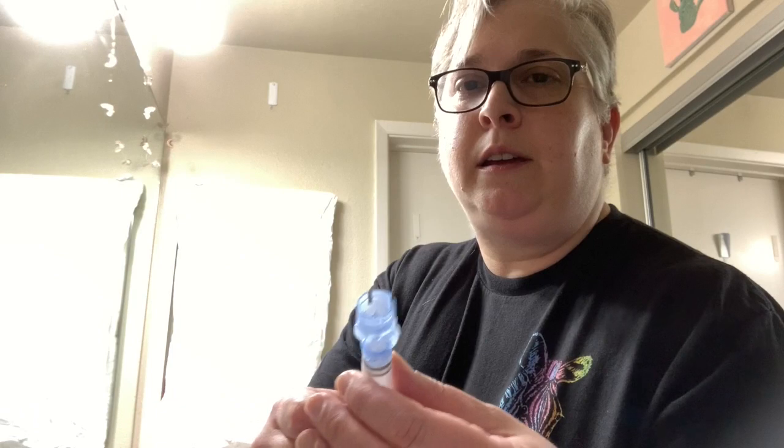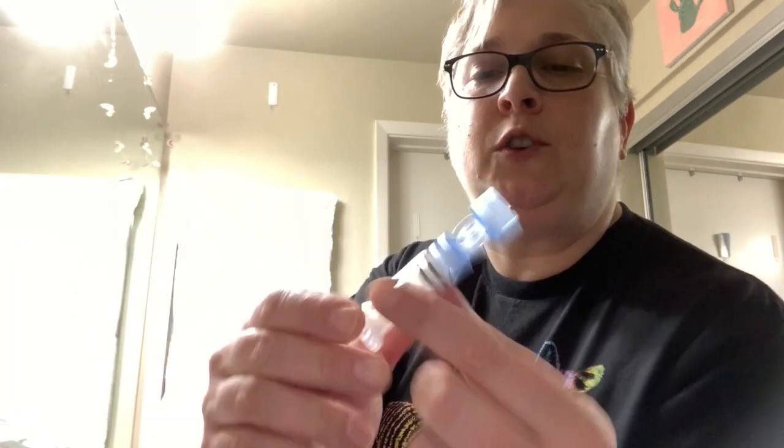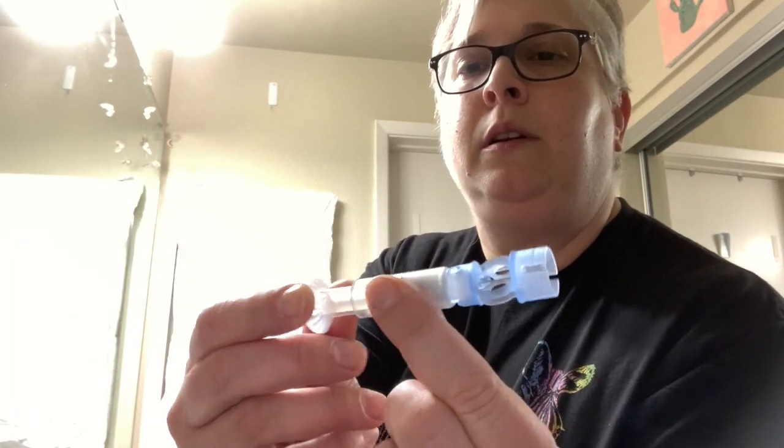So get the reservoir — I'm going to open it up. There are a couple of parts to it. See this top part? There's a needle in there; that's the needle that's supposed to twist onto the top of an insulin vial. The sterile saline vial is a different size — it won't work. Tried it, been there, done that. Tried to hack it, make it a little bigger — it just doesn't work. But this needle is great because it allows air to flow back and forth, so you can open up the reservoir. You can't do it without introducing some way to let air escape.